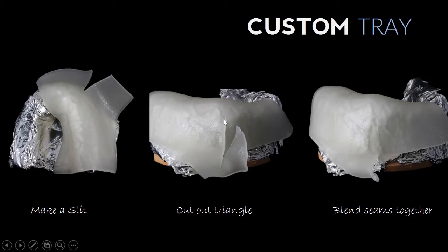But you don't want this area to be too thick and have a double layer, so you're going to end up cutting sort of a triangular piece here.